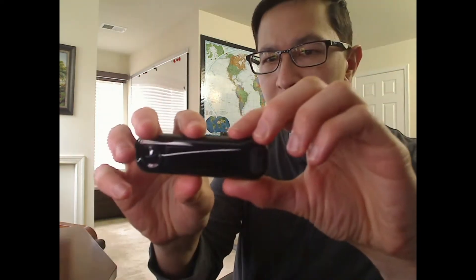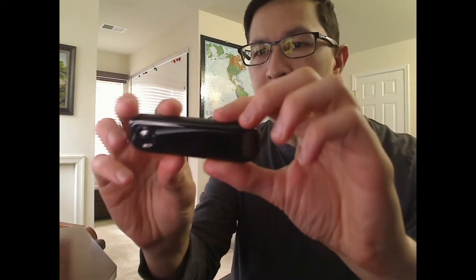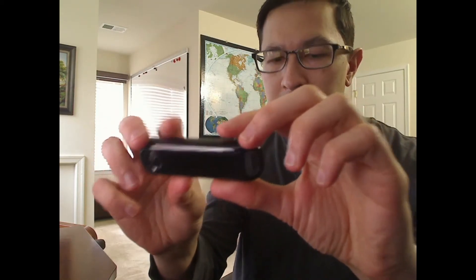Here's everything that's inside of the meter. I got my normal test strips and everything, but here's the glucometer. It's a nice little device about so big. This is Bluetooth based, so there's an app on the iPhone also. I think it has Android also.